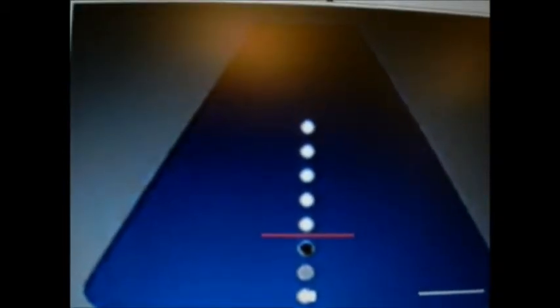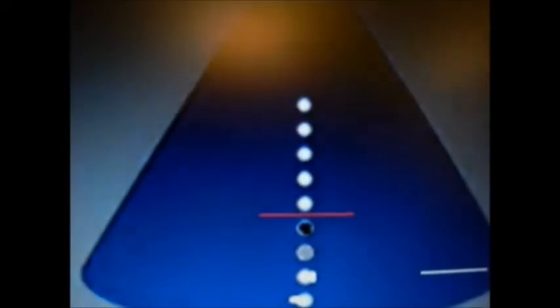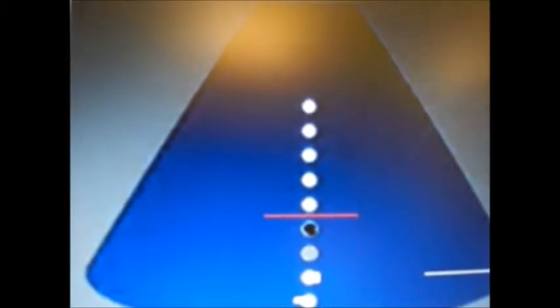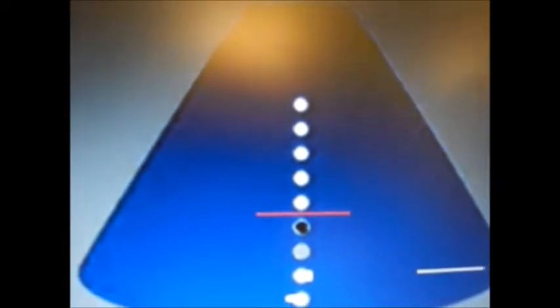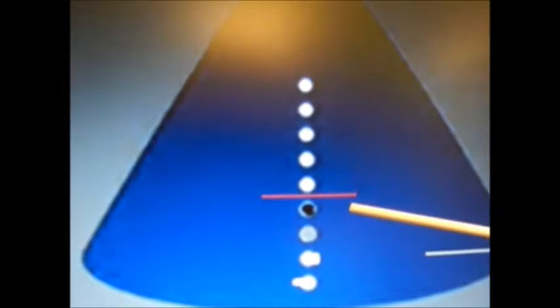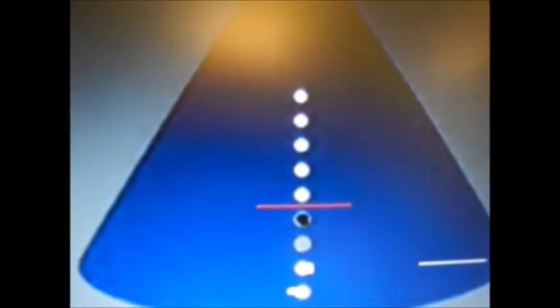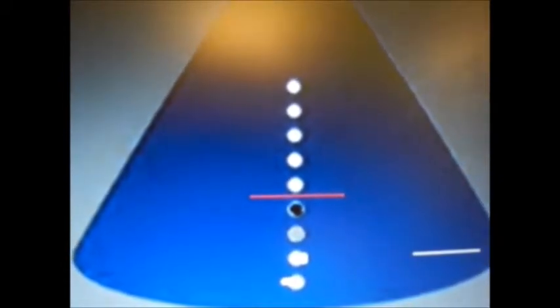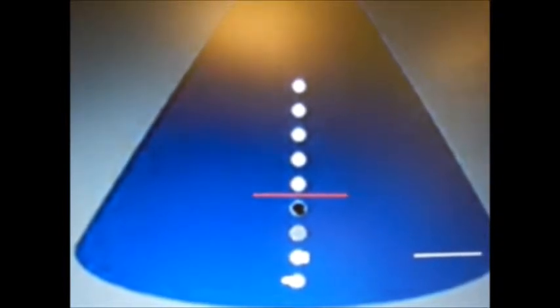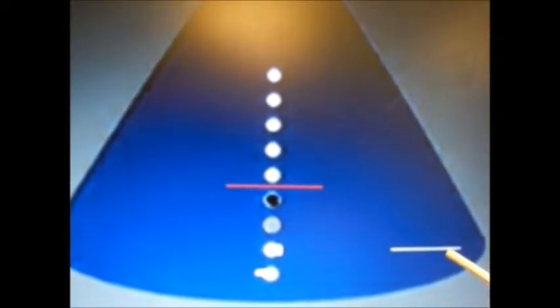In this photo, to measure uniformity, above the red line are reflectors that are uniform or identical. Below the red line, we see reflectors with discrepancies such as too dark or too light, different brightnesses, irregular or oblong in shape, and fuzzy. Lastly, we see a random line which also indicates non-uniformity.